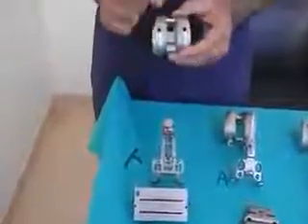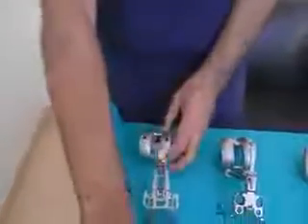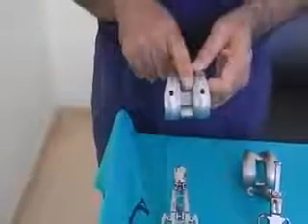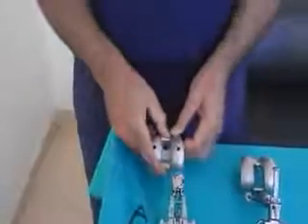The advantages of the DePuy system are that you can put a rod in the femur, and also put a rod in the primary tibia. On the AP cutting block, you can go two up and two down depending on how you want to titrate your flexion gap. The disadvantage is the higher incidence of patellar clunk and painful crepitus because of the taller box, but overall it has good long-term data in the registries.